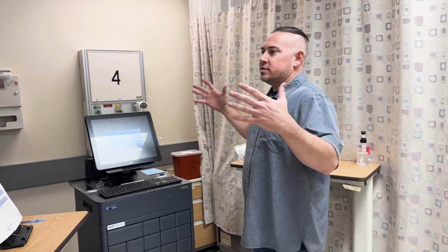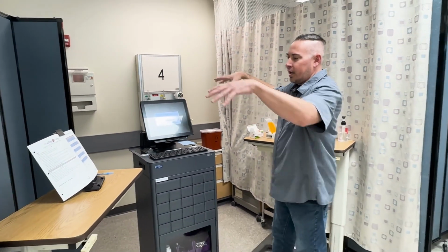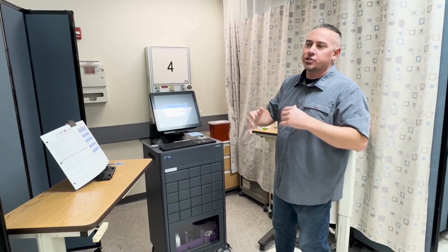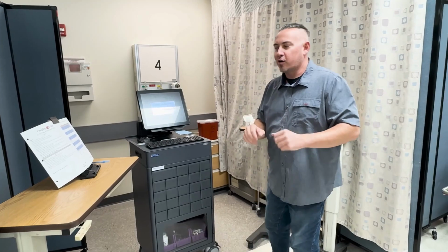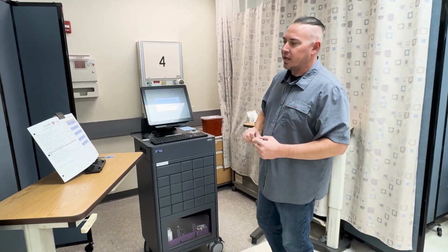All right, so now it's time to pull out medication and give them to her patient. What we've made in this simulation area is this own area over here just for medications. That's a separate room from the patient. So as far as your gelling in and gelling out, that's something you'll have to figure out on your own. But over here is where you're going to prepare your medications.